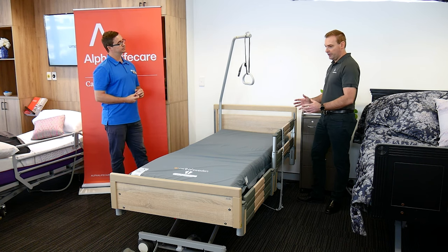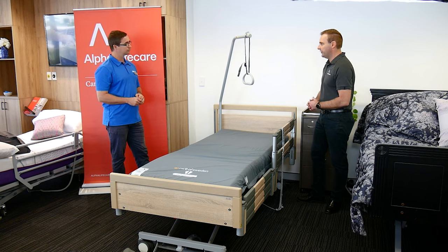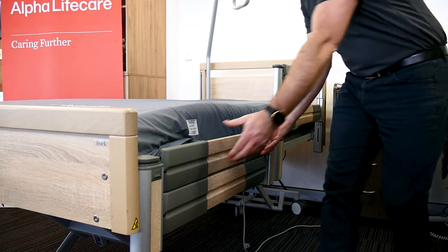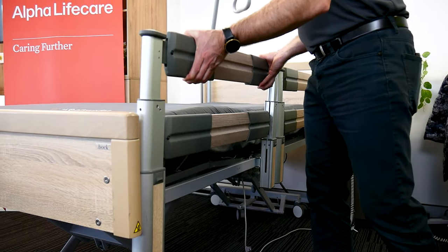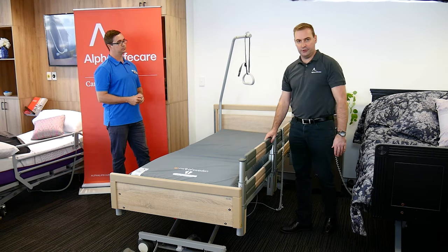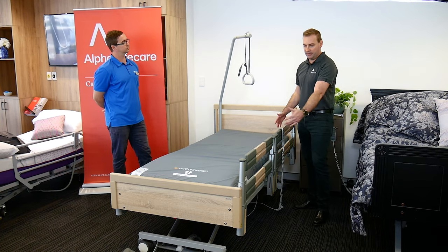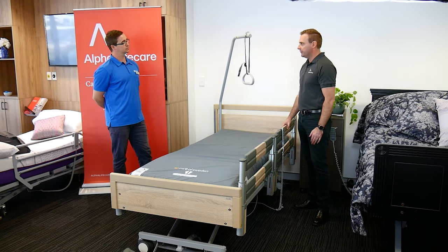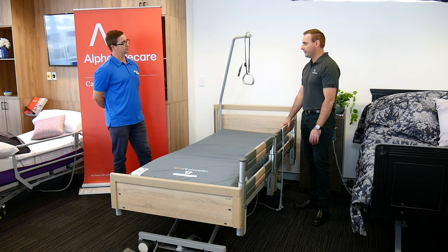If you do want to completely close the rail off — with all the tick boxes ticked — you can simply raise the second section. That can either be installed or not installed, but it can then become a full side rail for the protection of the client if that is needed.